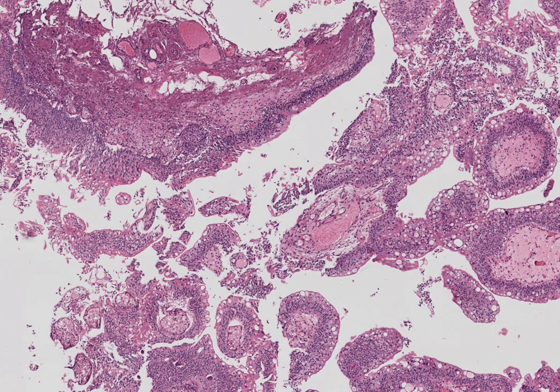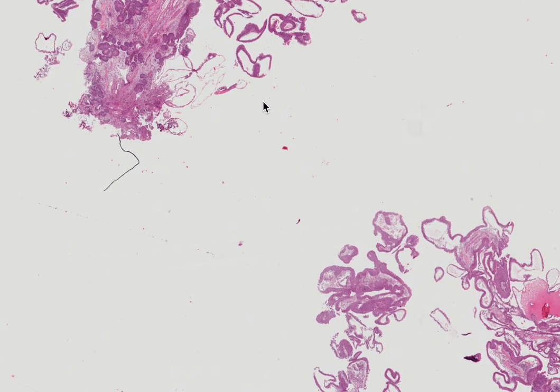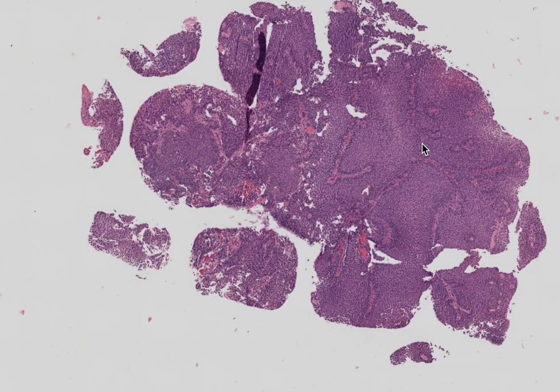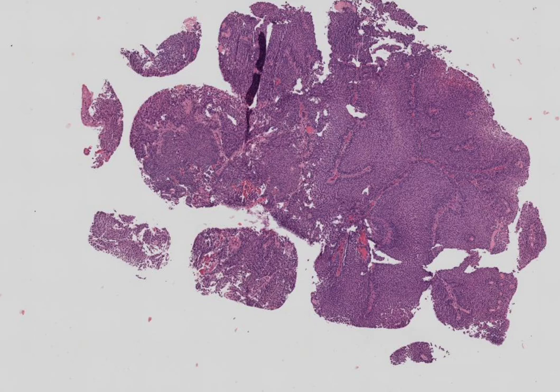The first is a simple urothelial papilloma. The second is PUNLMP — papillary urothelial neoplasm of low malignant potential. I also have a slide of non-invasive low-grade urothelial carcinoma. I will also show an image of high-grade urothelial carcinoma, which is easily differentiable. I'll share a classical WHO table which is very useful for reporting a slide or when you're stuck in a slide seminar trying to reach a diagnosis.